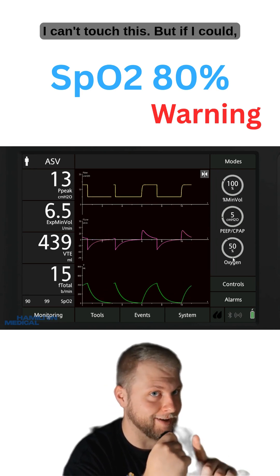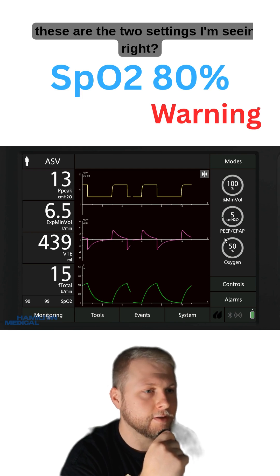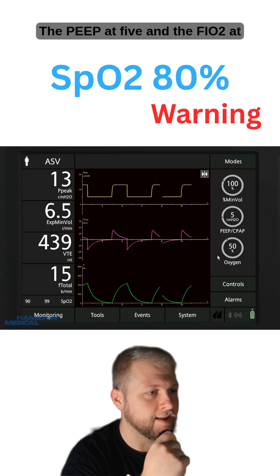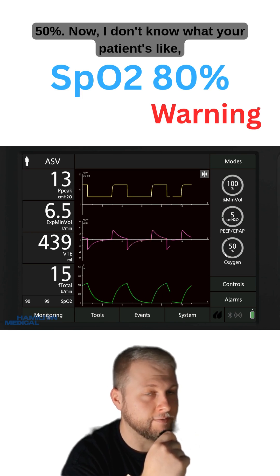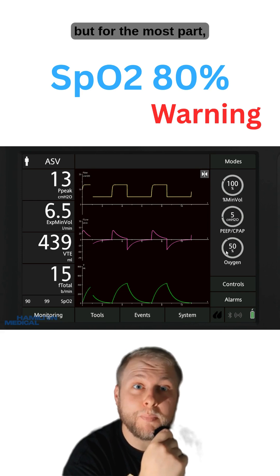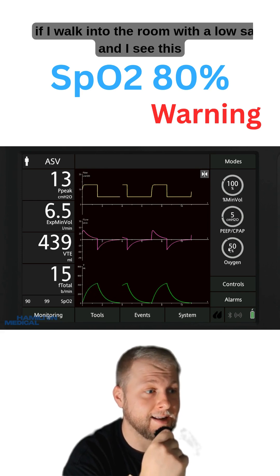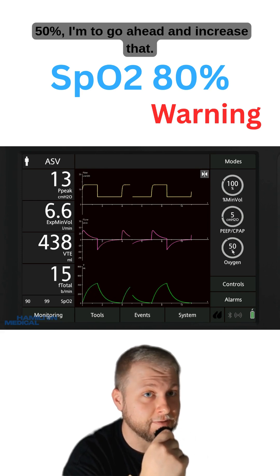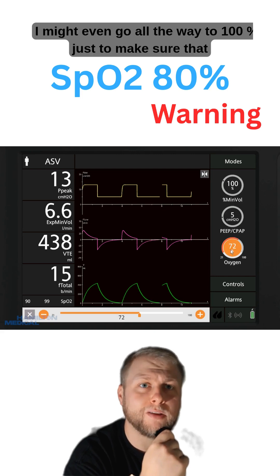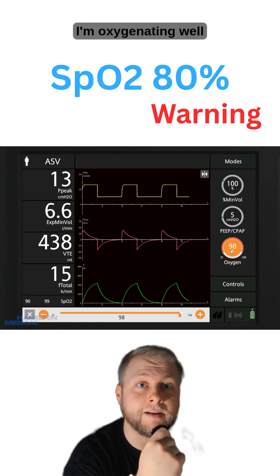Say you walk into the room and your pulse ox is 80% and you look at the ventilator — you can't touch this, but if you could, these are the two settings you're seeing: PEEP at 5 and FiO2 at 50%. For the most part, if I walk in with a low sat and I see 50%, I'm going to go ahead and increase that — I might even go all the way to 100% just to make sure I'm oxygenating well.